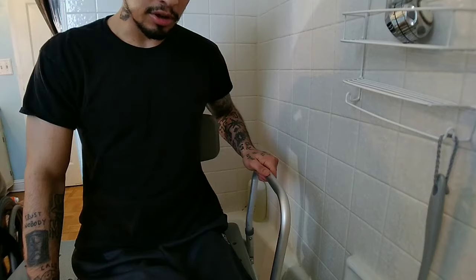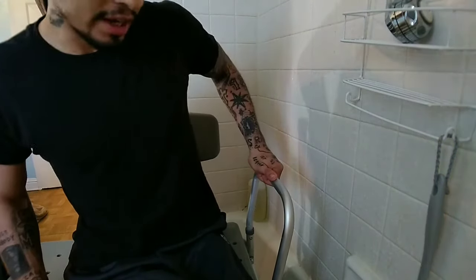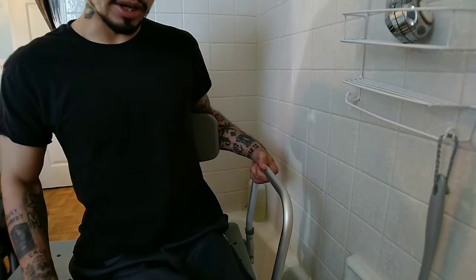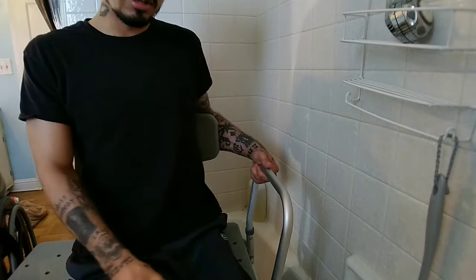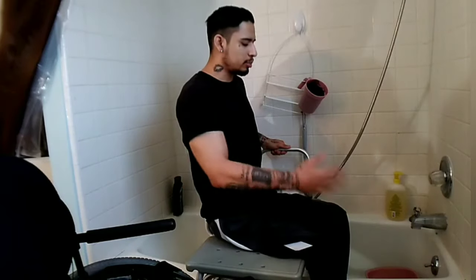I have my hand on the armrest and then I have my elbow behind the seat for extra support — versus just right here, it's harder to support myself. So with my elbow behind the seat, I can lift up my legs. Without that it makes it harder. Then you get your other leg and just pull it over.